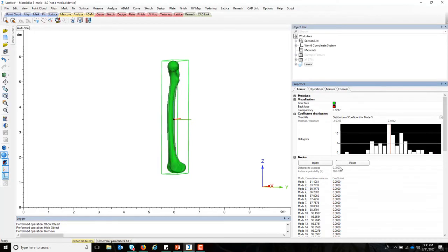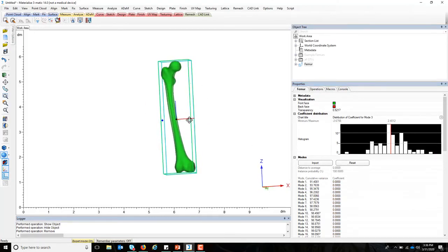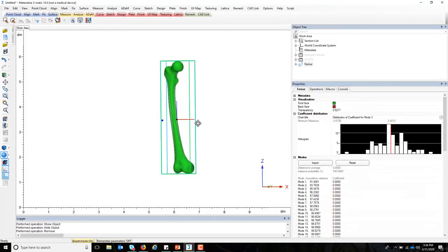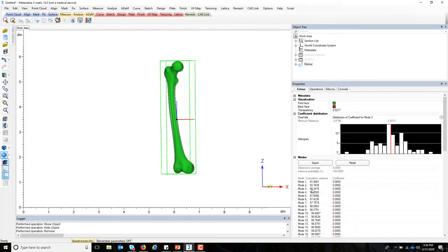Now it's very important to note that this is almost like a rendering. You can play around with the models and you can change the modes to create any instance of a patient that you'd be interested in testing. Perhaps it's an average patient to know how well your device fits, or perhaps it's a very extreme patient: very small, very large, high curvature, low curvature. You can use these techniques of manipulating the modes to create very extreme patients.